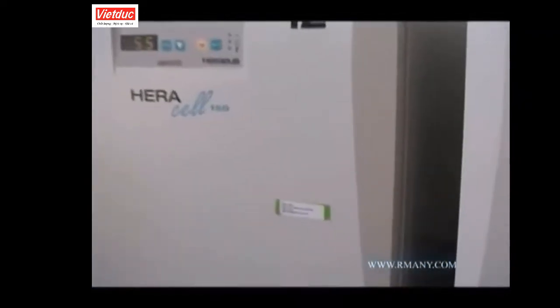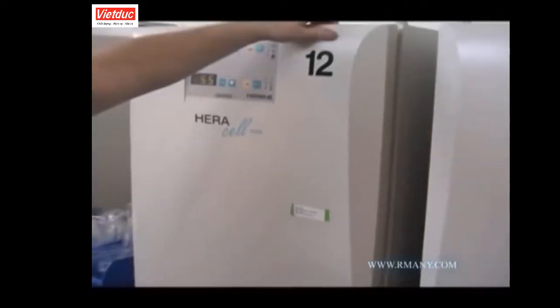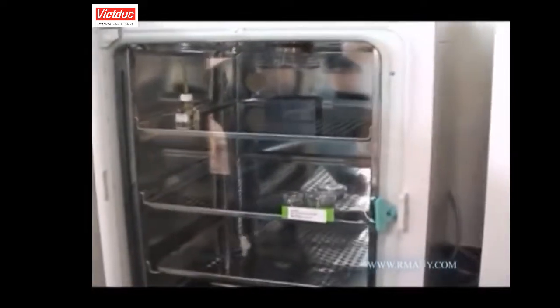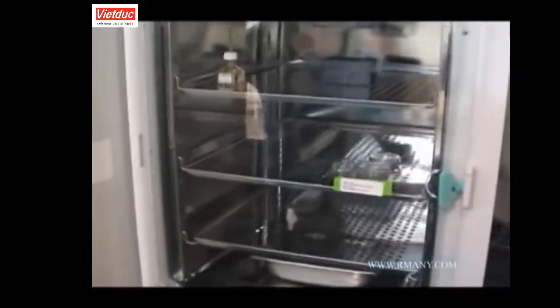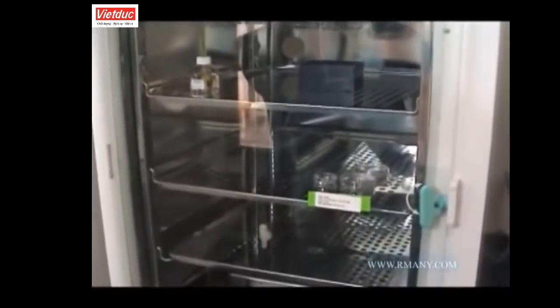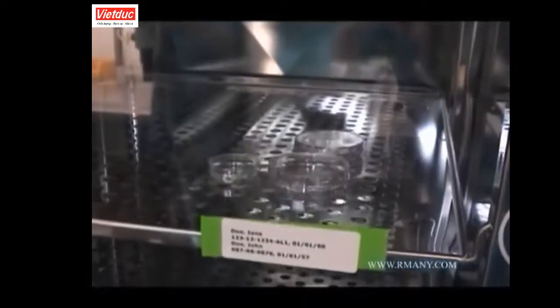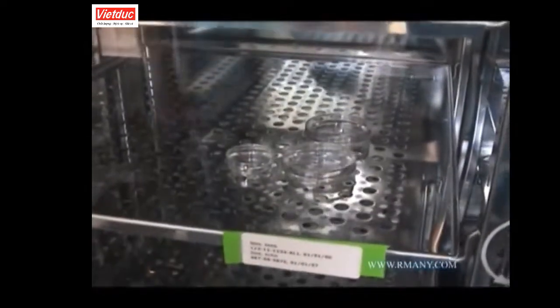Let's begin by showing how your sperm, eggs, and embryos are labeled and easily identified while being cultured in our laboratory. The incubator containing your specimens has a printed, color-coded label with at least 2 unique patient identifiers for you and your partner or sperm donor. These may include your name, social security number, or date of birth. This incubator contains the culture dishes for patient Jane Doe, seen here on the incubator shelf directly behind the patient-specific label placed on the inner glass door.